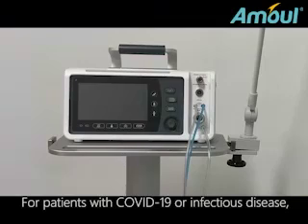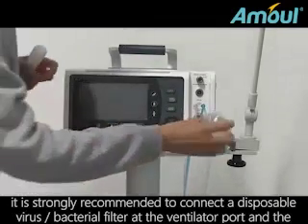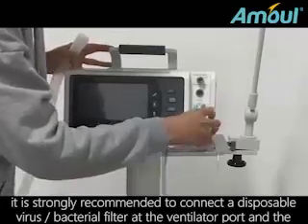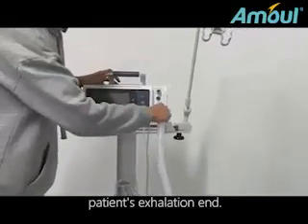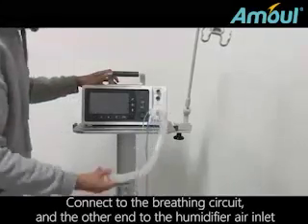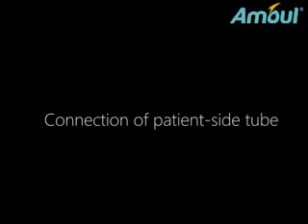For patients with COVID-19 or infectious disease, it is strongly recommended to connect a disposable virus and bacteria filter at the ventilation port and the patient's exhalation end. Connect the breathing circuit and the other end to the humidifier air inlet. Connection of patient side tube.